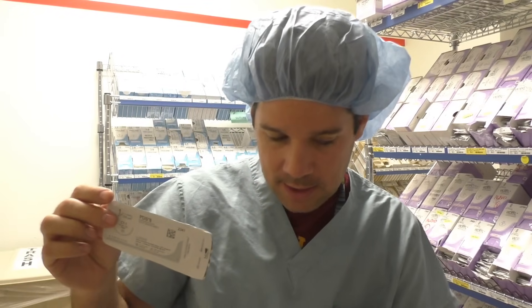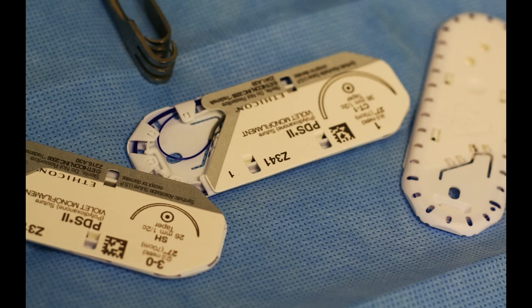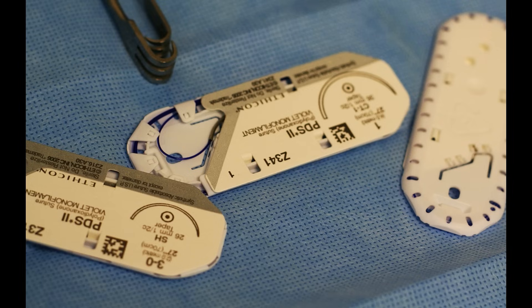The fourth suture is the PDS. PDS suture is absorbable and monofilament. The packaging is drab gray, and the suture itself is violet — a purple monofilament suture. If you're doing any type of big open general case, like a big open laparotomy, you will see this used. It's used to close up the peritoneum, rectus, and Scarpa's fascia — all in one big bite. They use a big TP1 tapered needle on a number one PDS, and you'll see that used for primary closure of the peritoneal space.